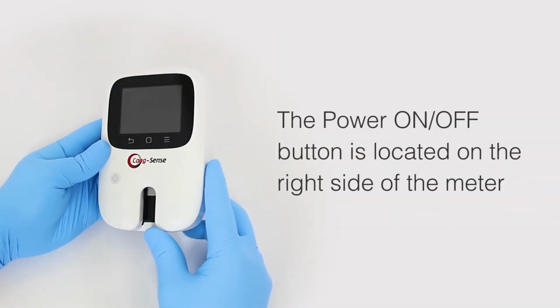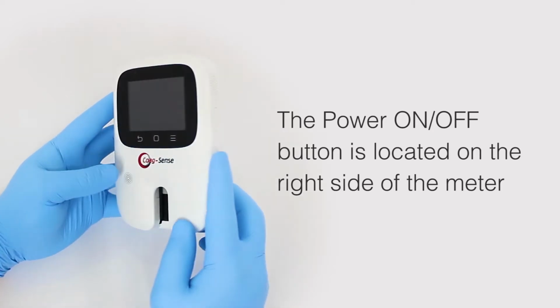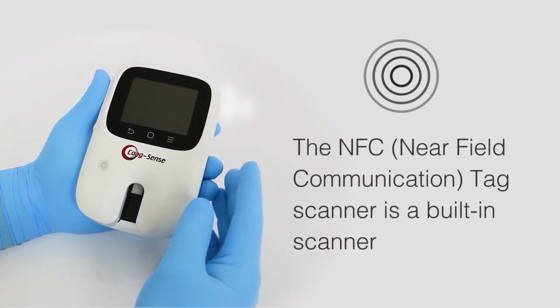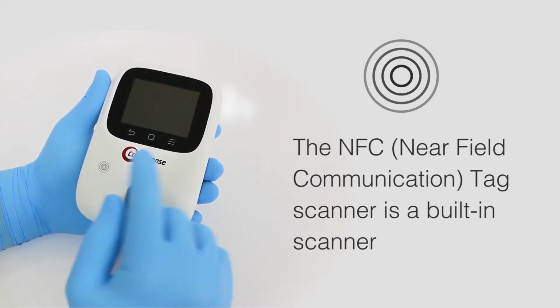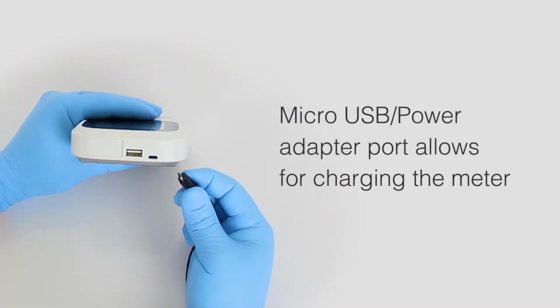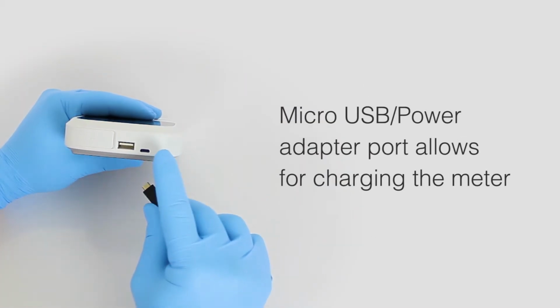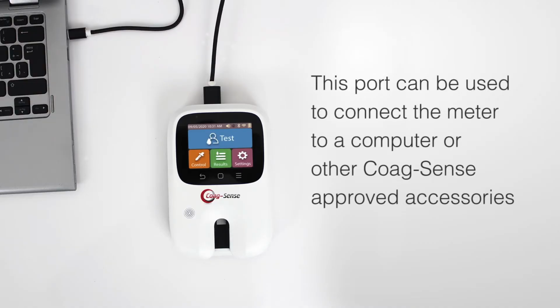The power on-off button is located on the right side of the meter. The NFC (Near Field Communication) Tag Scanner is a built-in scanner that is used to scan the NFC card containing the strip control and test strip data. The Micro USB power adapter port allows for charging of the meter. This port can be used to connect the meter to a computer or other Coag-Sense approved accessories.